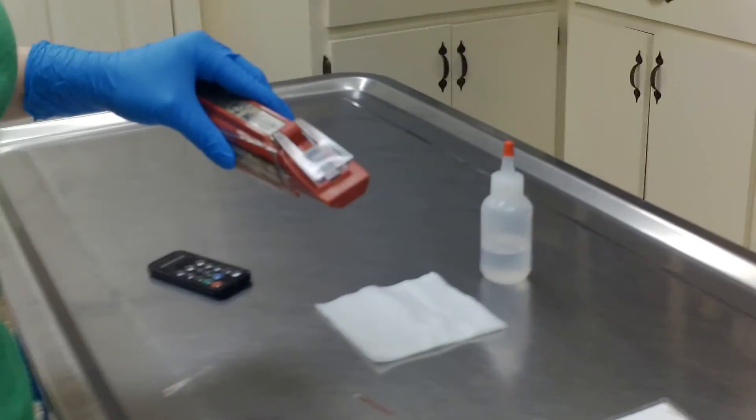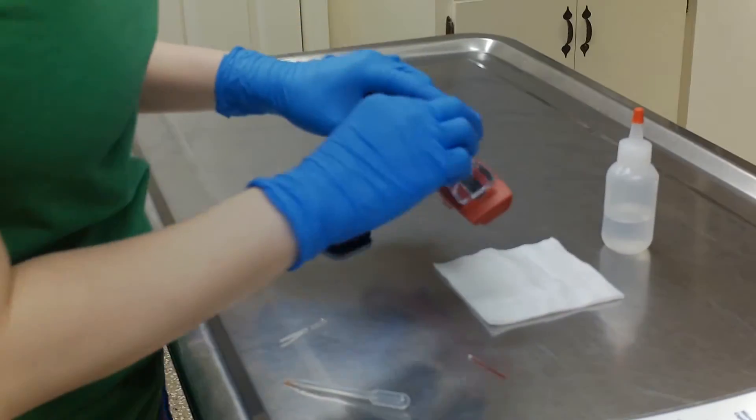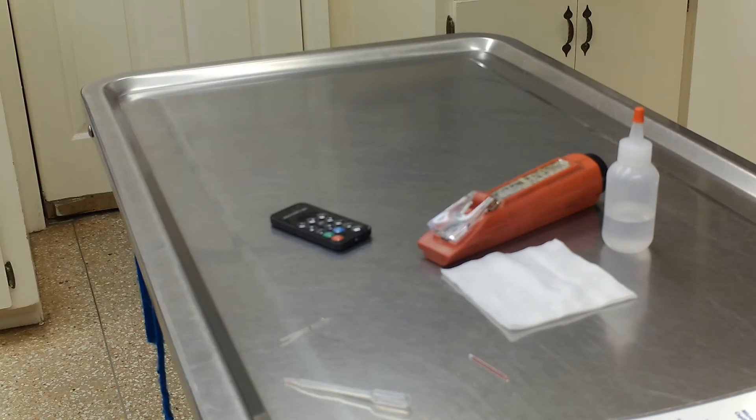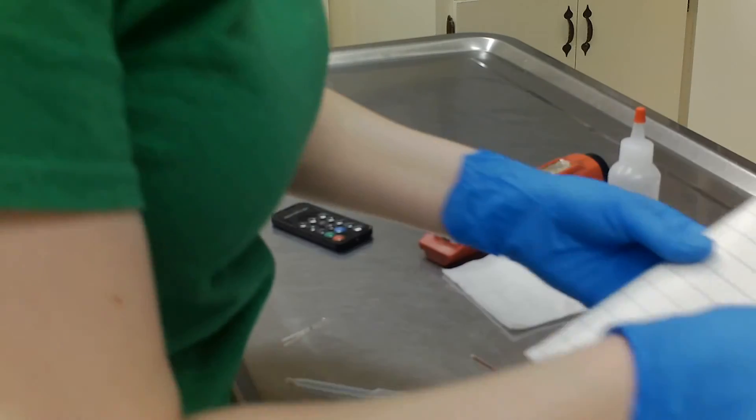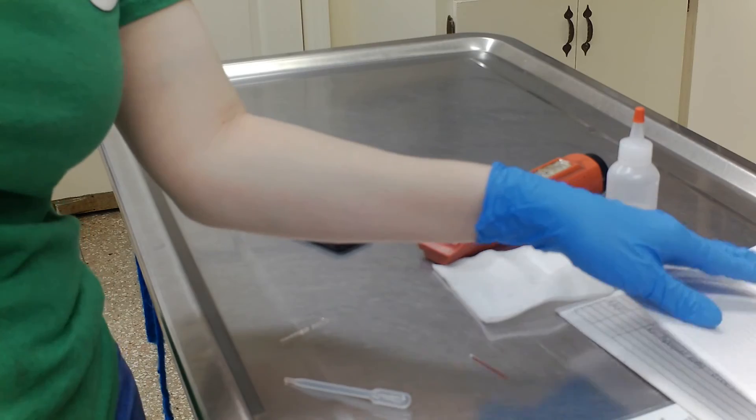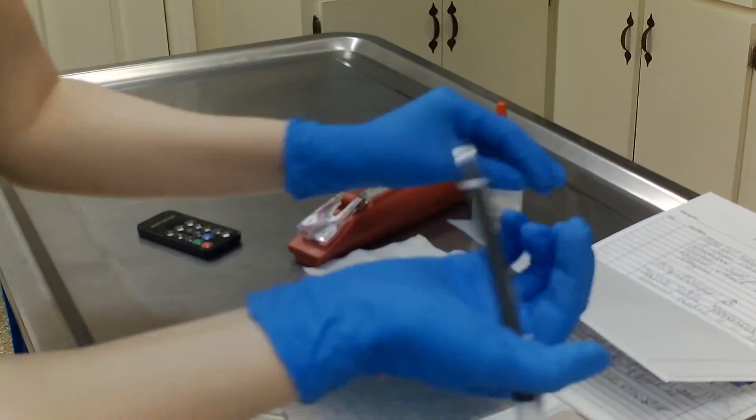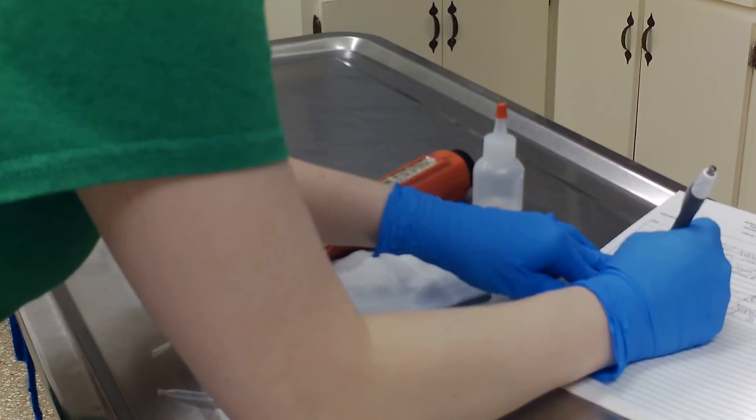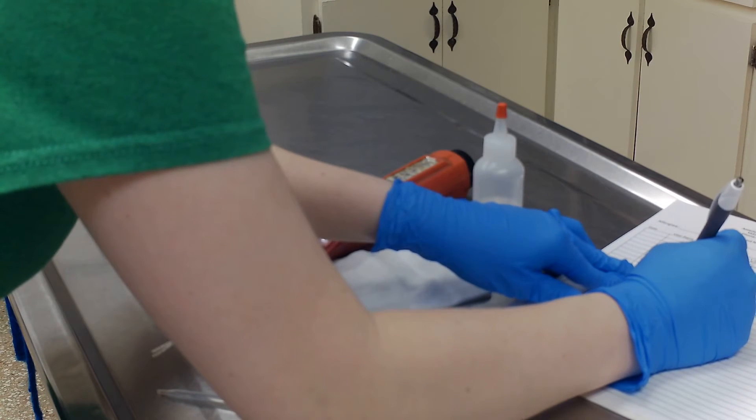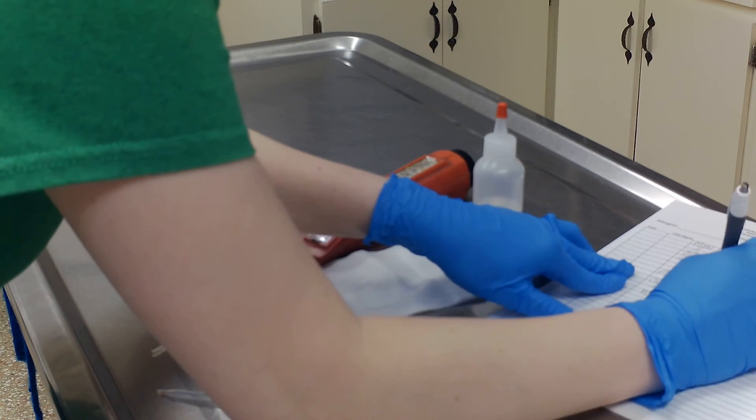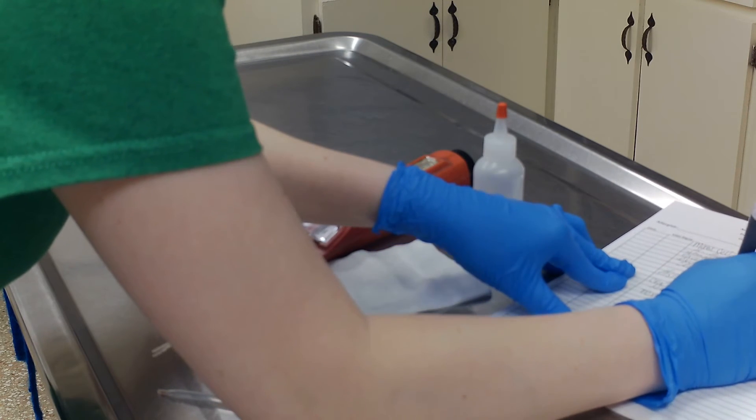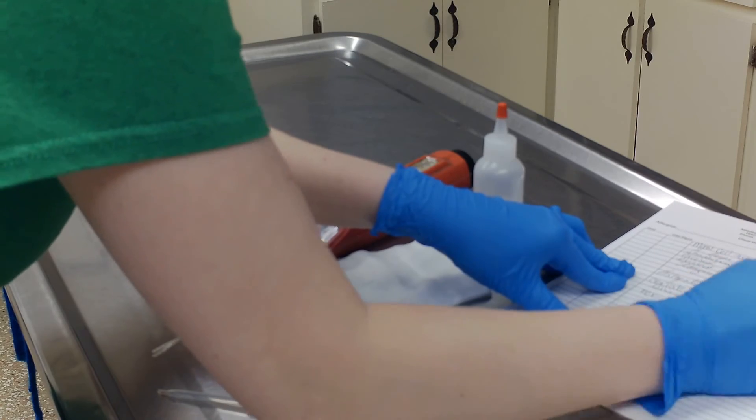All right, the next thing we're going to do is wash it off. We're going to actually make note of that in the patient's chart. The PCV was 64 percent and the total solid protein was about 11 grams per deciliter.